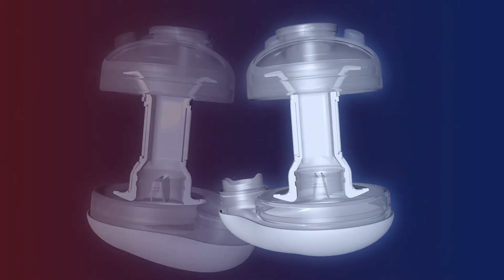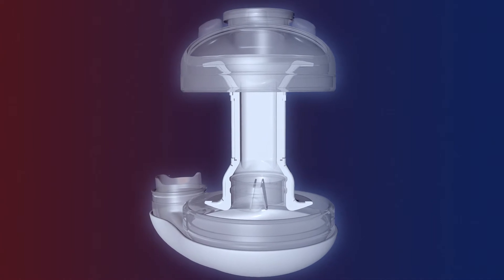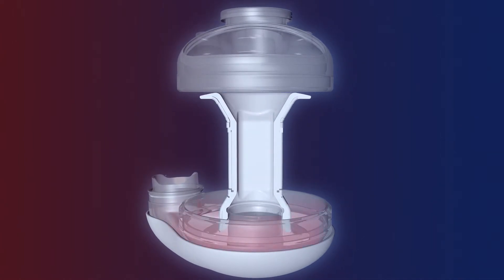This creates the pump function. When the valve cylinder moves towards the pump's ventricle, the valve closes and the pressure increases in the ventricle. This leads to the blood being pumped out in pulses.